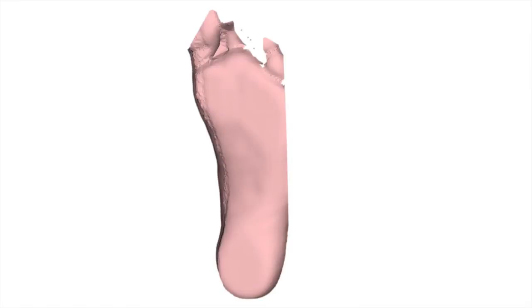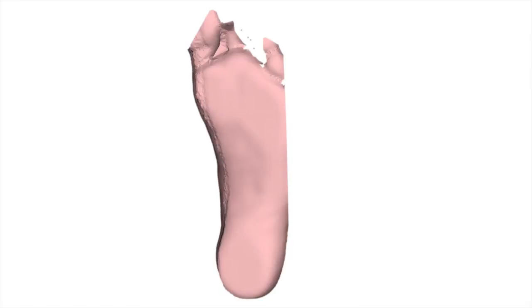Now for a couple of fairly common issues seen in scans sent to the lab. Here's an example of where the 5th metatarsal is missing and the foot has been placed too laterally on the scanner.